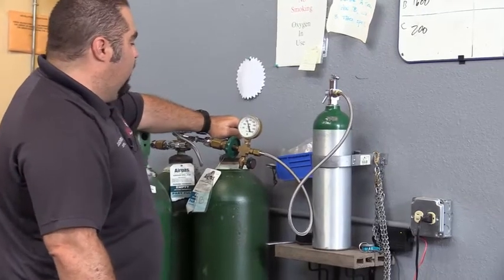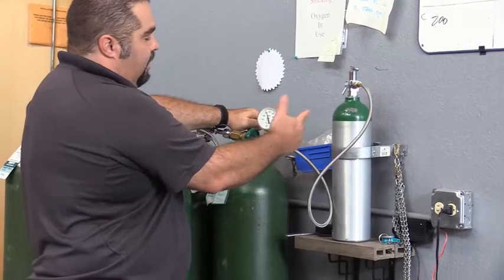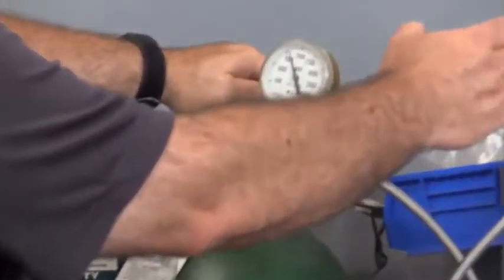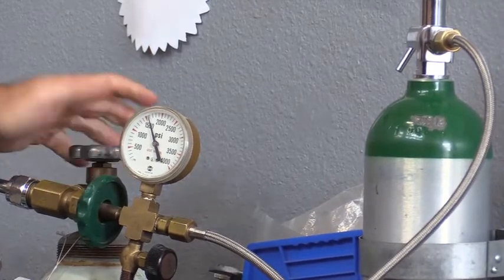So in this case, we're going to open this and normally you'd see this come up to a thousand. In this case, you're actually going to see it go down to a thousand because it's actually going to push oxygen from here back to there. So we're going to go ahead and do that. I'm going to open that up.